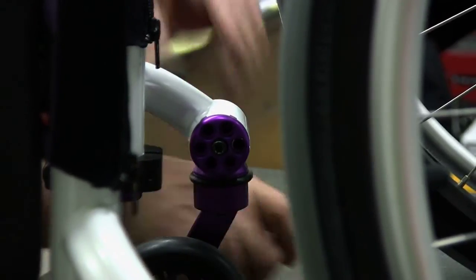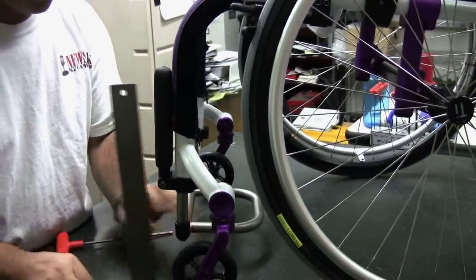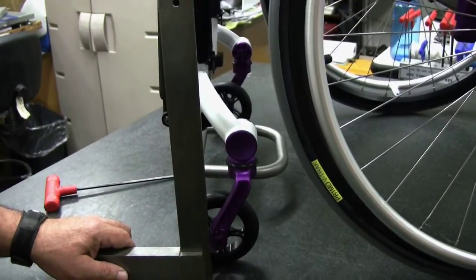Note: If your chair is equipped with frog legs, you must square the barrel of the frog legs to the level surface using a bubble level bracket because the flat edge of the frog legs fork is not parallel to the caster mount assembly.